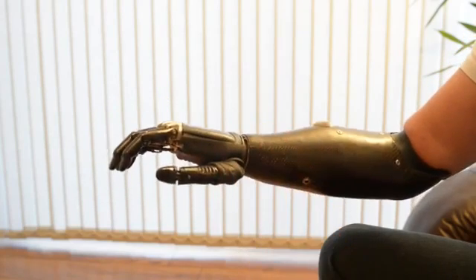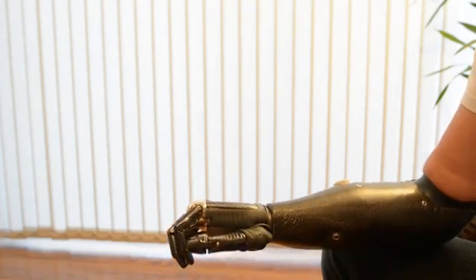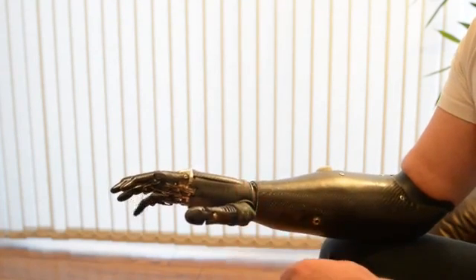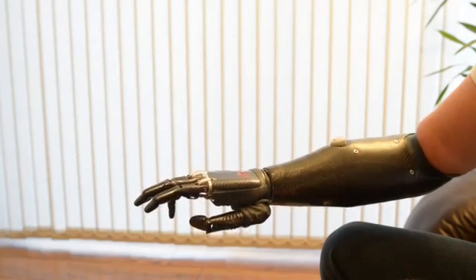Having a relaxed grip — this is so that when you walk down the street it just looks like a normal hand. You can close it a bit further if you want to. And then we have a mouse grip. This will hold a mouse, single click, double click.